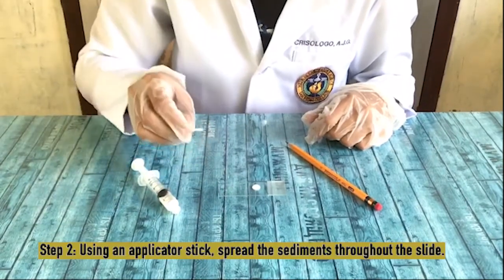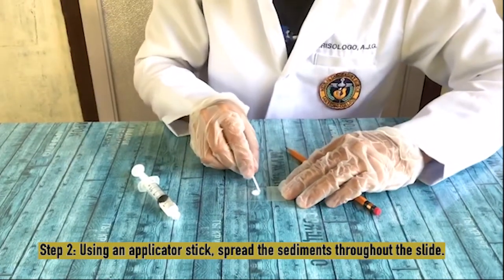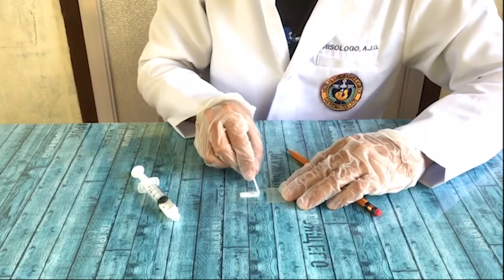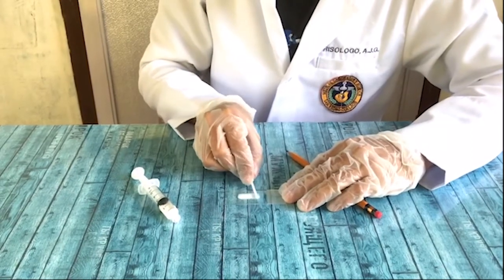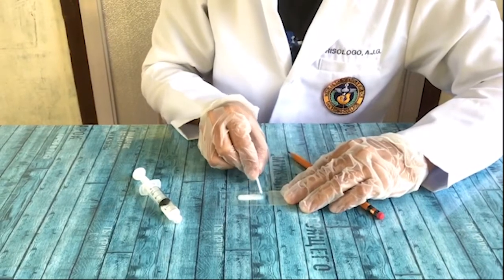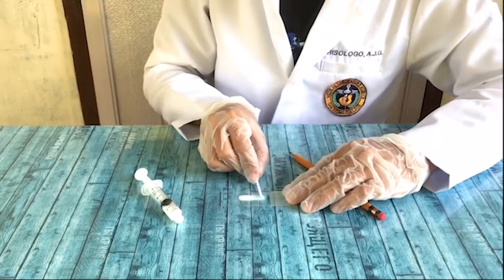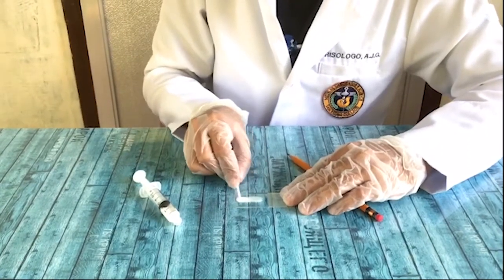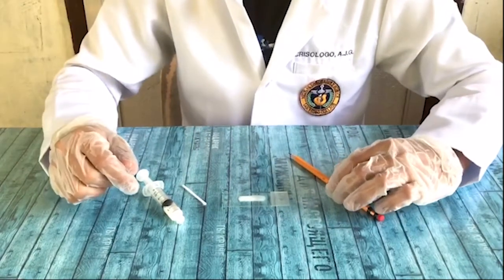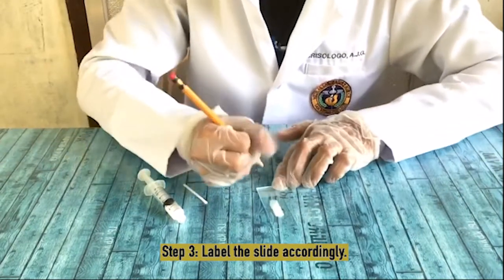Using an applicator stick, spread the sediments throughout the slide. Lastly, label the slide accordingly.